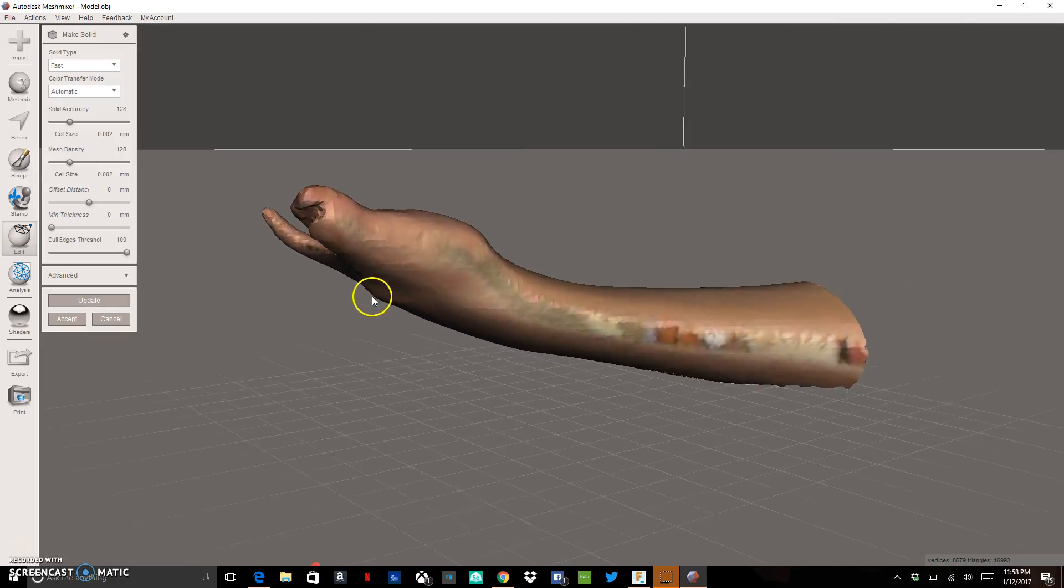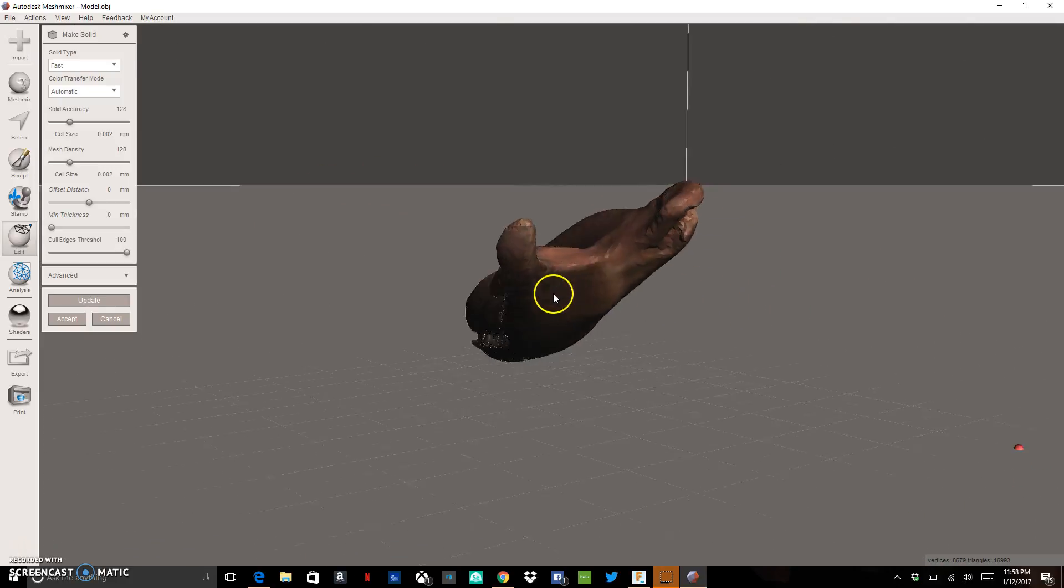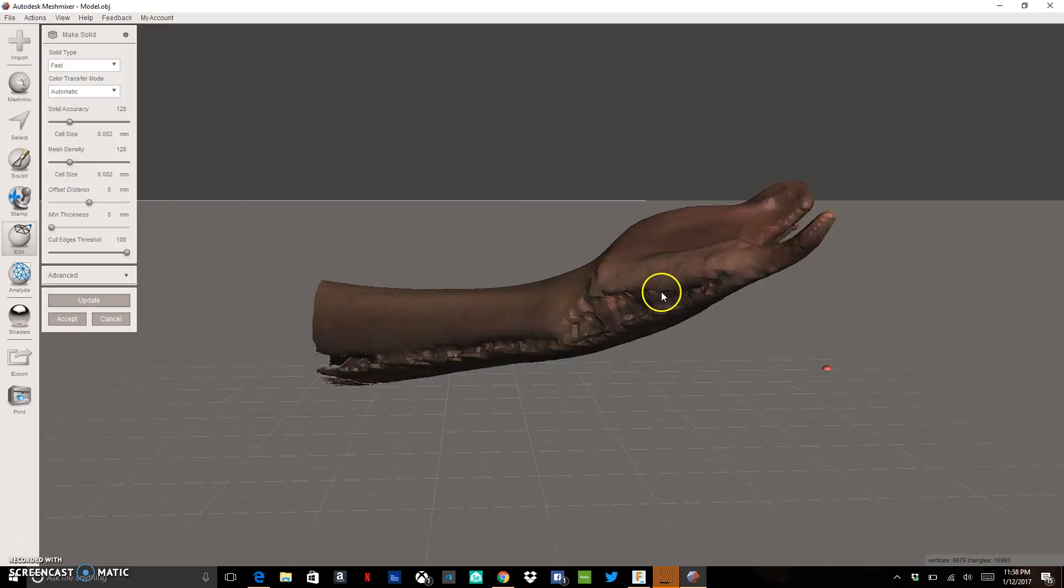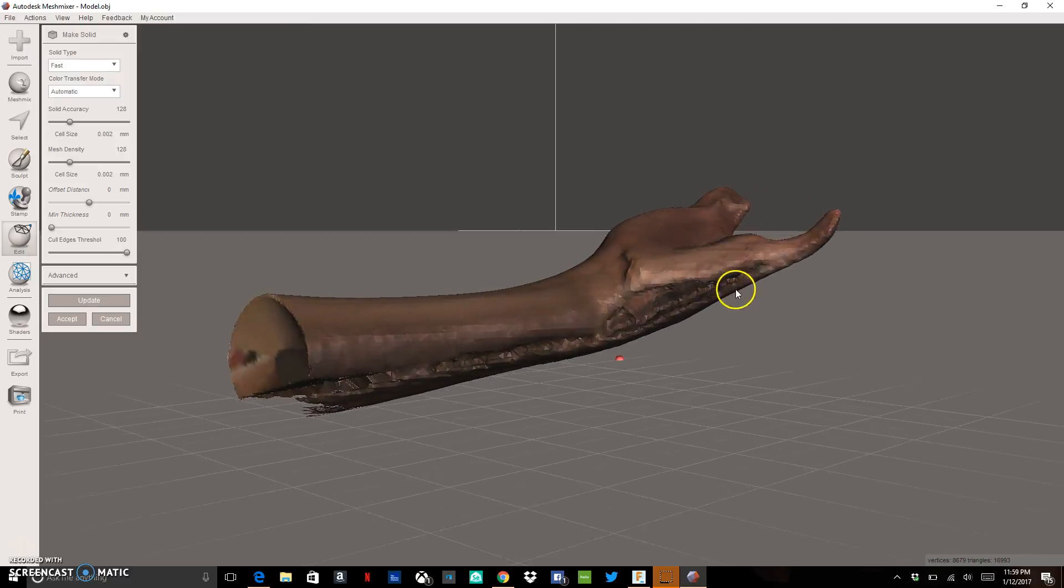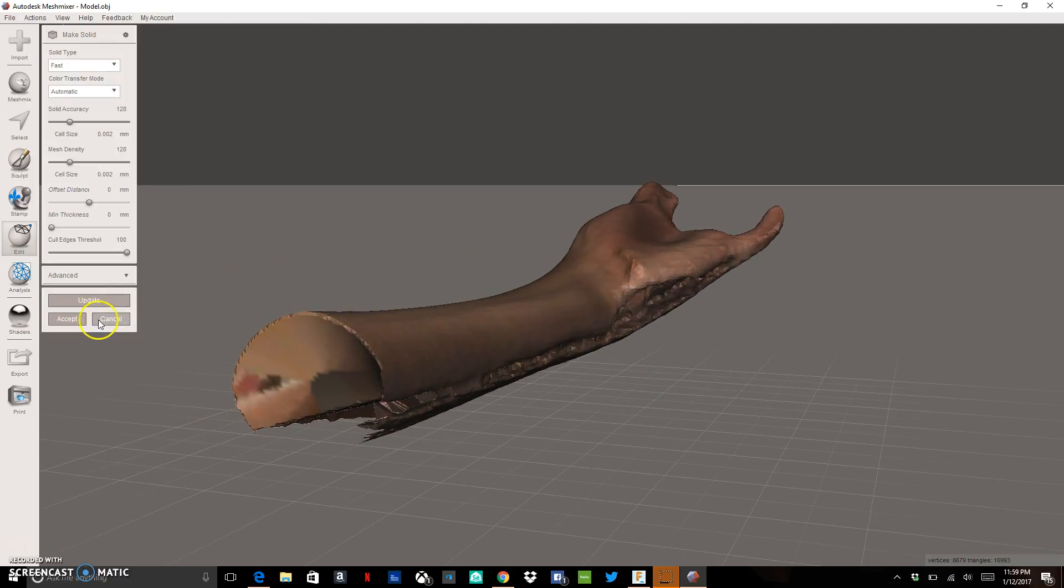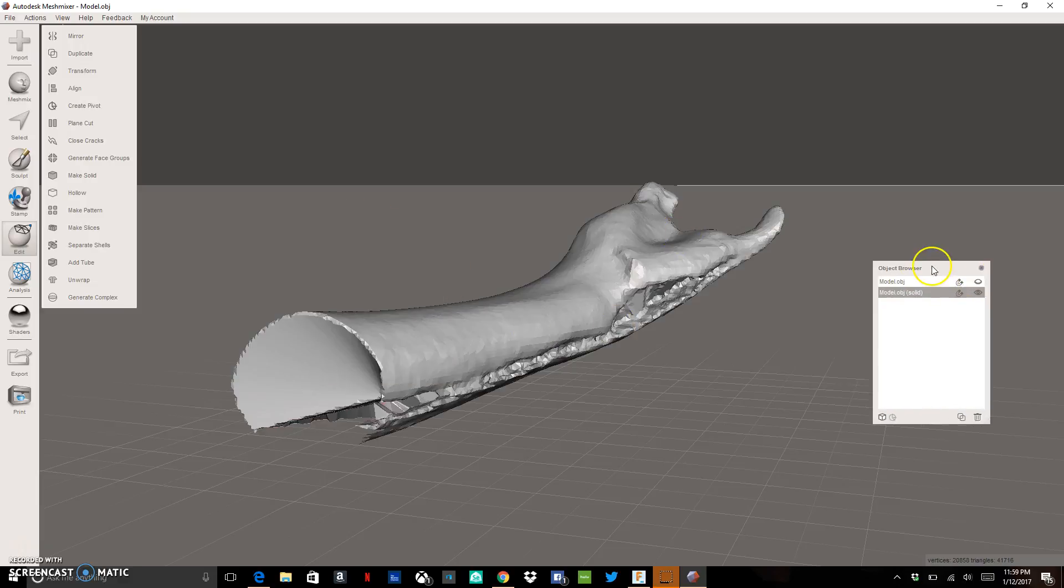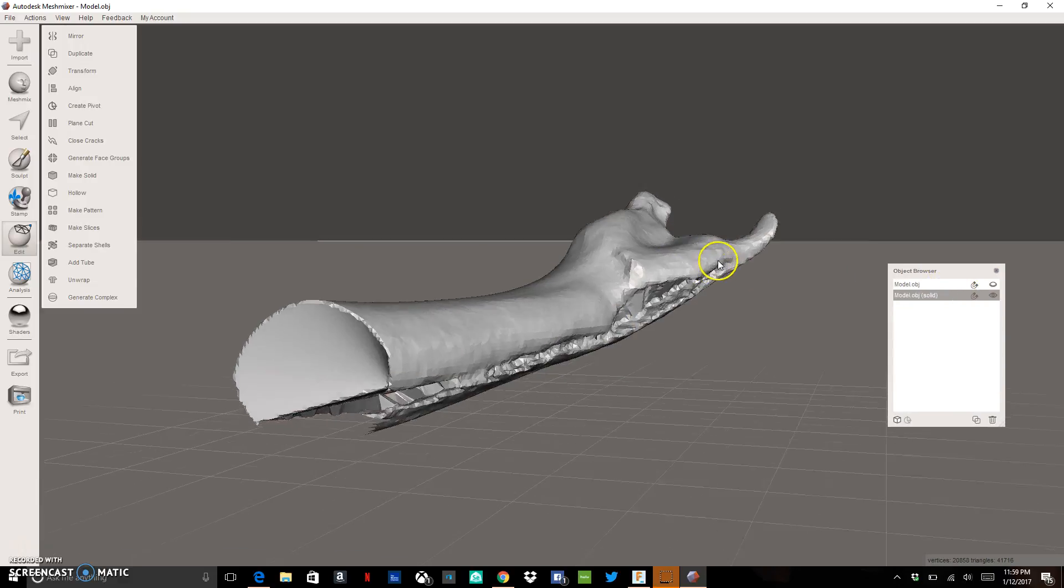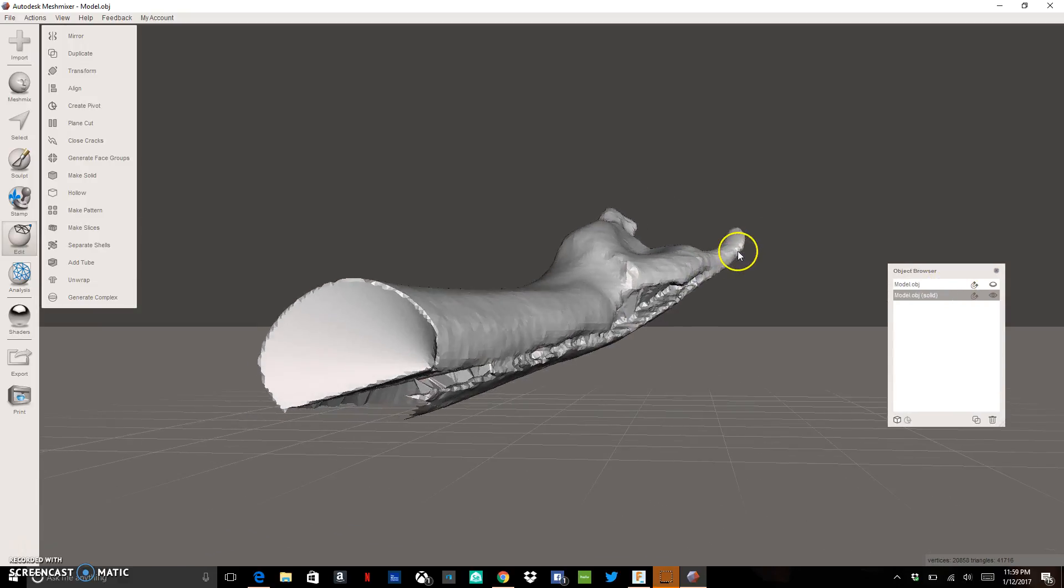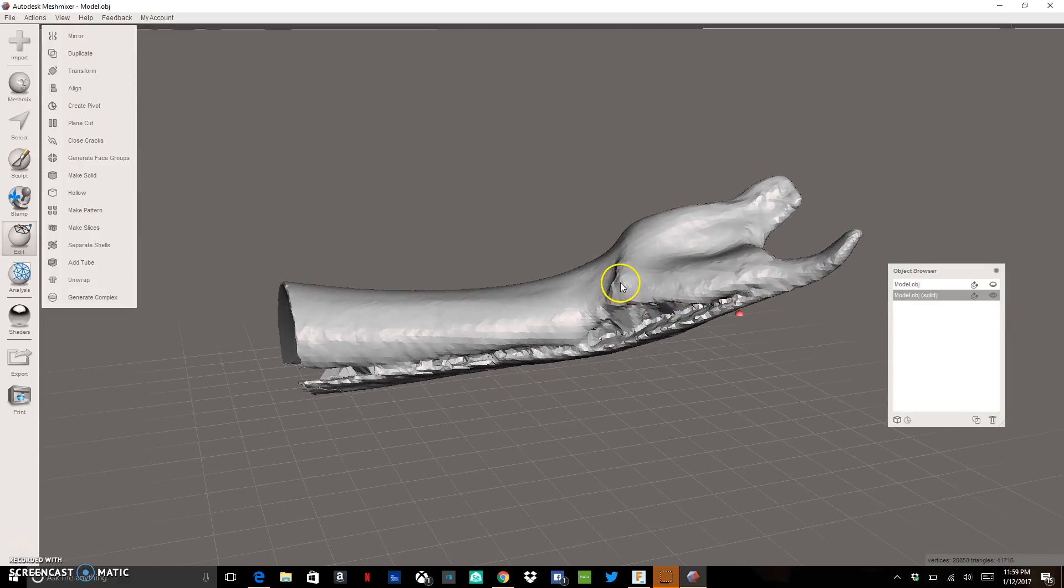This is going to give us a nice good general shape of the limb that we're trying to fit a partial prosthetic to. So we can go ahead and accept this and we're going to get a nice gray scale model. And all I need to do now is I need to trim off the pieces that I don't need.